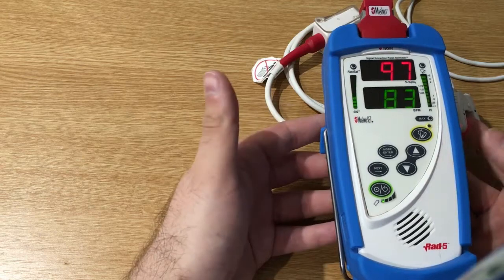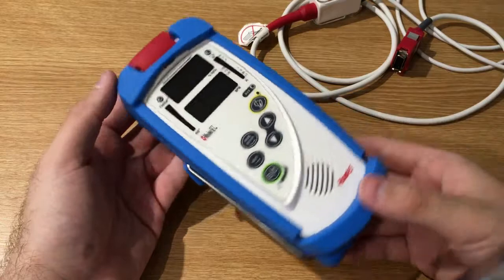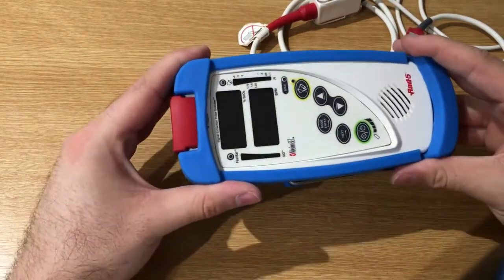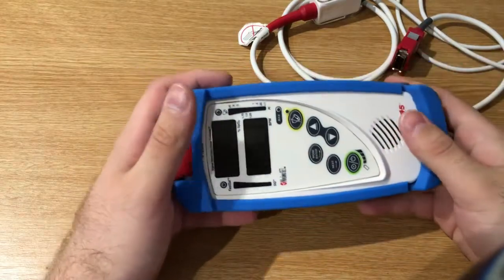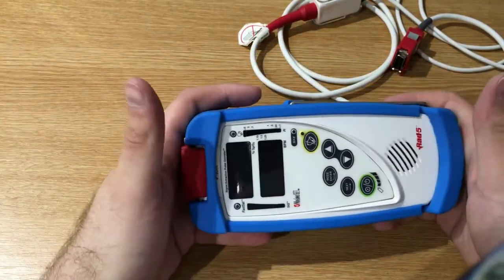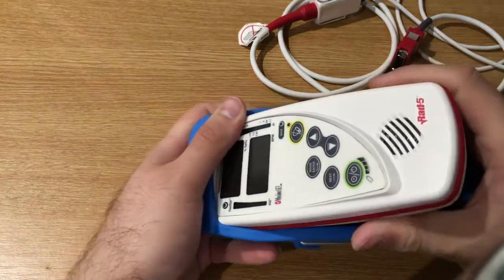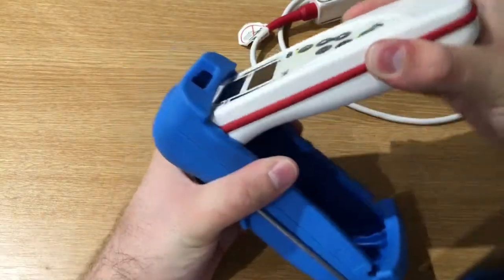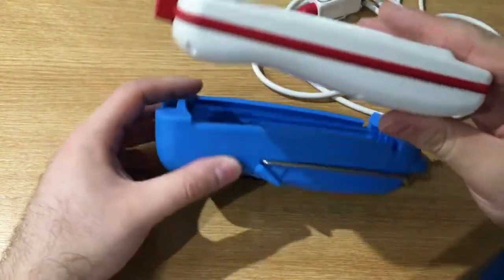So that's pretty useful. In the end, I think this is a very good device. The cover is a great plus. It's pretty thick and keeps it safe from bumps and drops. It's pretty easy to remove it from the cover, and as you can see, it's pretty small without the cover. The cover has a lot of volume to it.